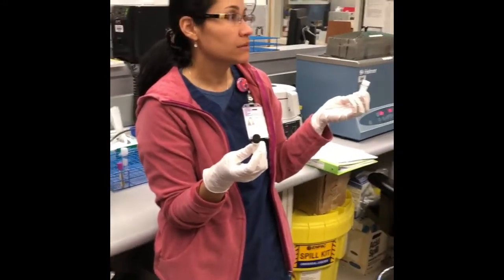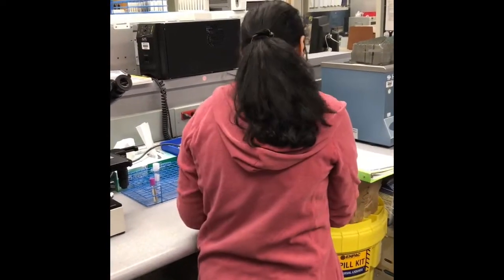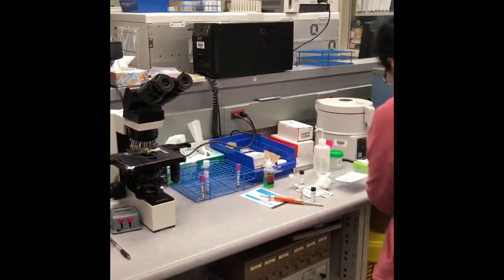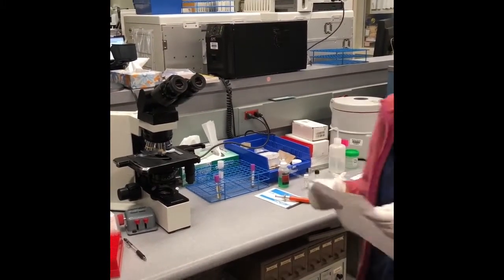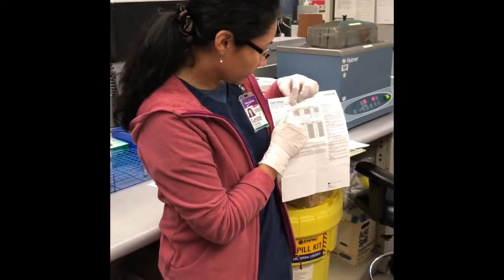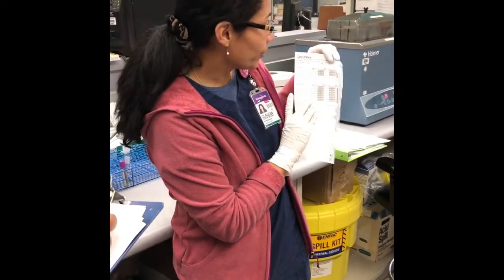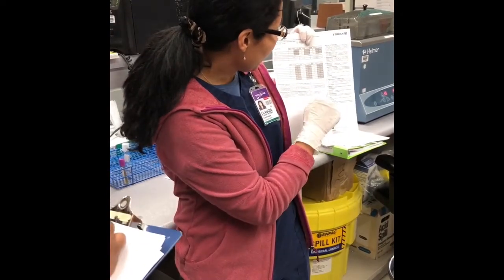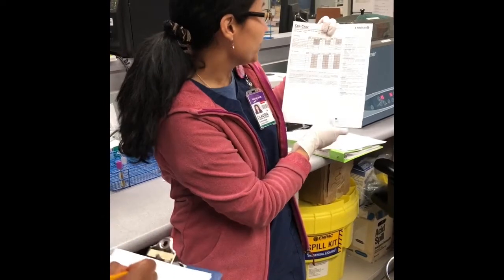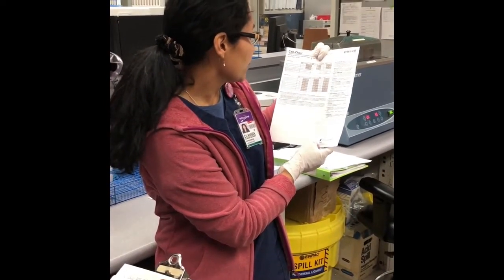It should be the lowest, no more than what's according to the insert. Which one? Level 1 is the white column. So you will see an average of 5. That will be your lower count. And for your high, it's right here. Your high you will get more, an average of 97, sometimes 100.